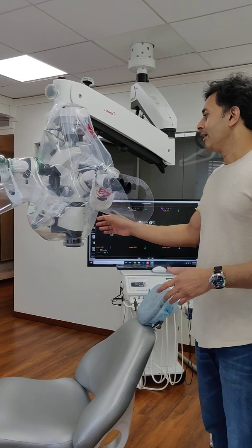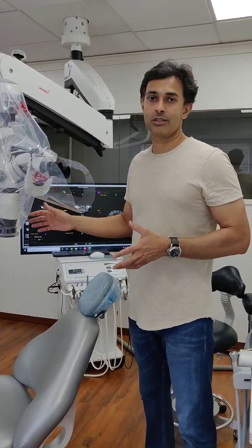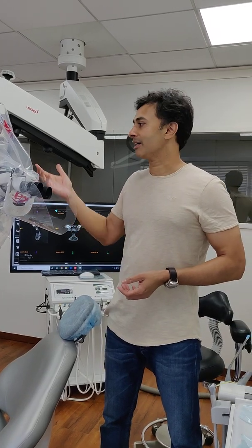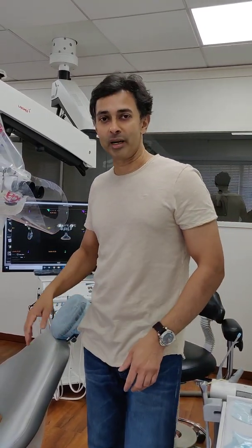Now the only disadvantage I can think of is there is too much plastic. I'm hoping that any manufacturer who is listening to this is going to make something more biodegradable, rather than using just so much plastic. So that's how we work. That is the scope.